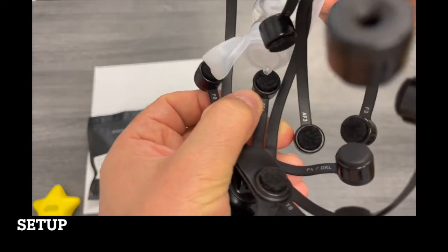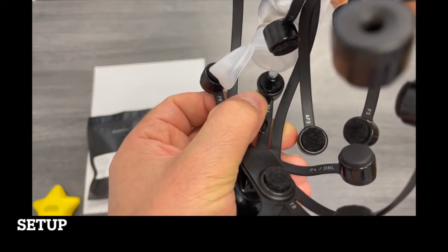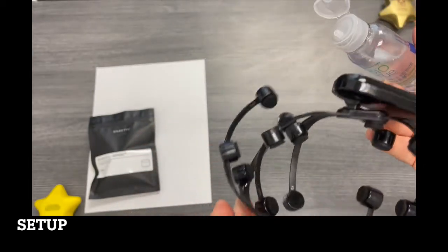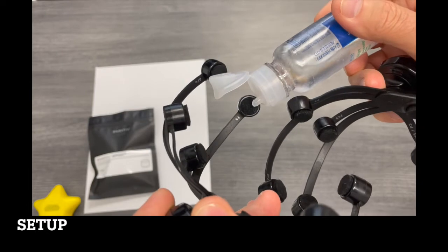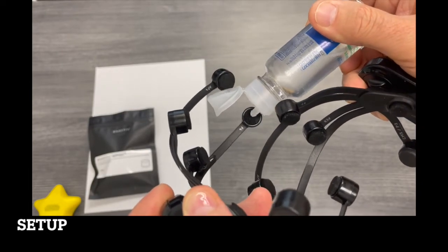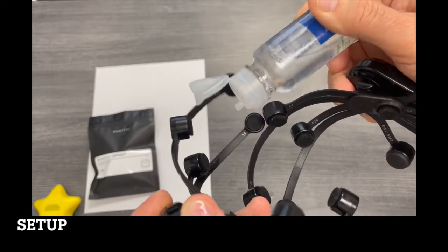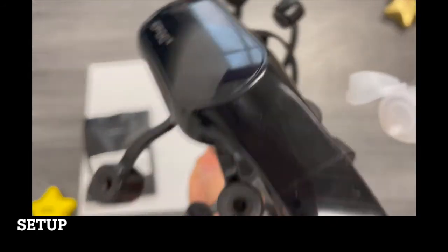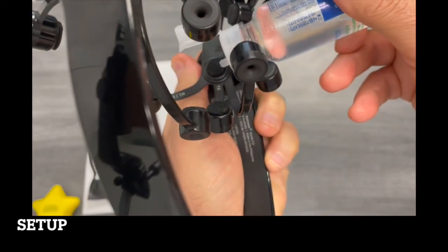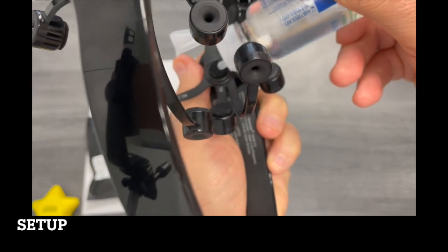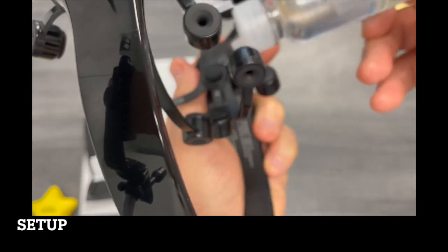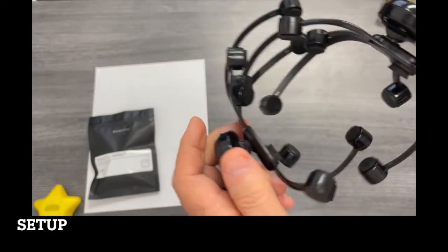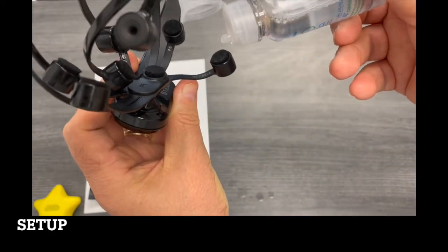Once you're done with the software installation, you will just need to prepare the unit for use, and I demonstrate actually using the saline so that I create a better contact between the felt pads and the electrodes inside so I can have a clean EEG recording.